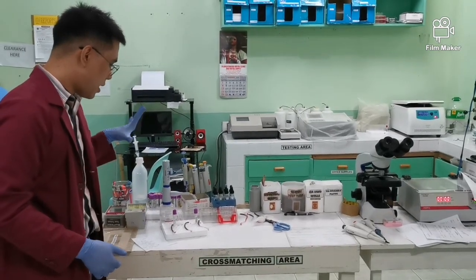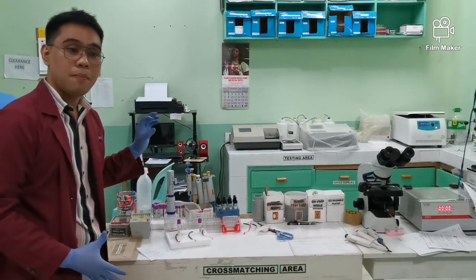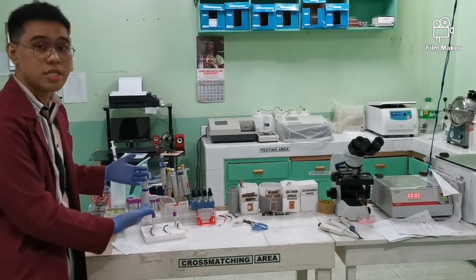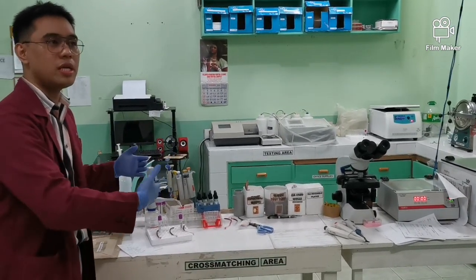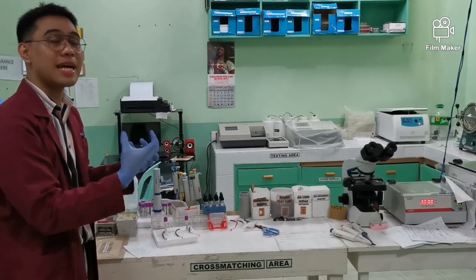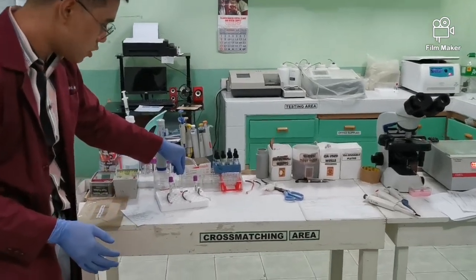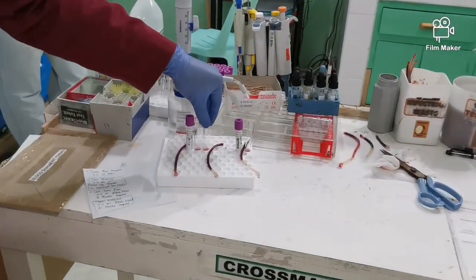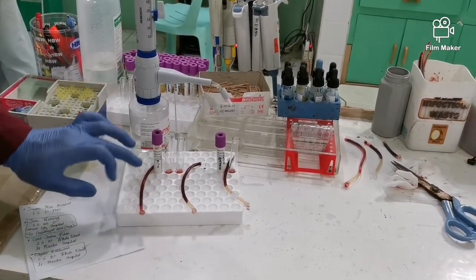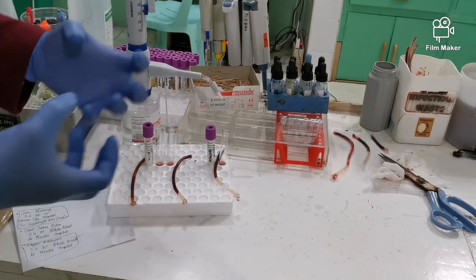So in this part, may gumagawa ng cross-matching. Okay? So ito rin yung isa sa mga binabayaran ninyong fee kapag kumukuha ka ng dugo. So this ensures na yung itatransfuse sa'yo na dugo, kamatch mo talaga. Okay? Safe na tatanggapin ng body mo. So ayan, meron tayong different tubes dito and titignan mo lang kung merong reaction or agglutination na mangyayari. So ito yung sample and then yung dugo na ita-transfer sa'yo. Basically yung gagawin lang dyan, imimix lang yung blood ninyo. Okay?